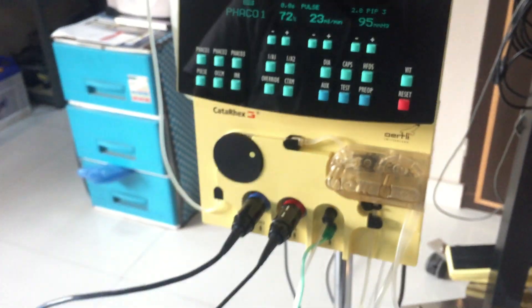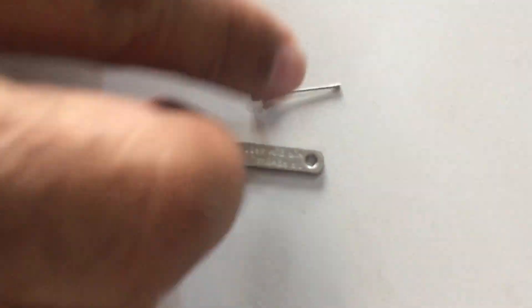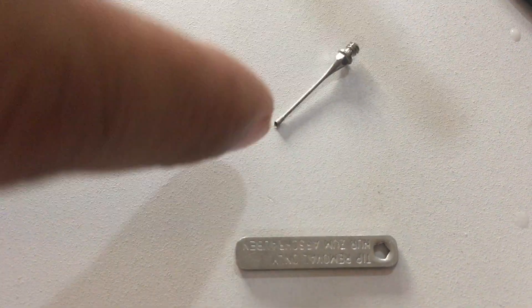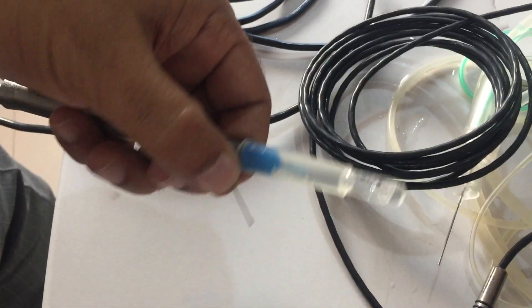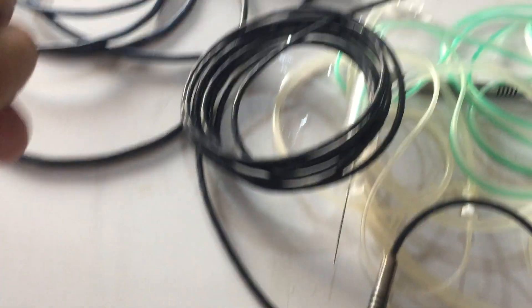Here is another type of tip — this is a disposable tip with a disposable key. If you want to use this disposable tip, you can mount it on the handpiece using this key only. Thank you very much for your understanding.